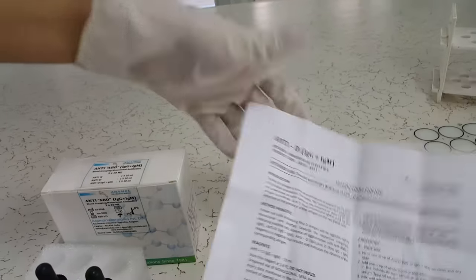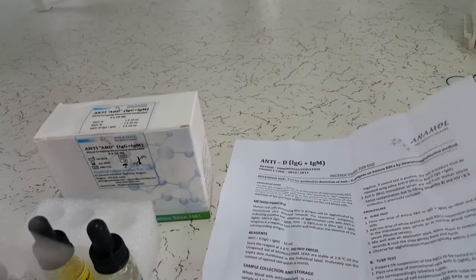The kit also contains a package insert. We recommend all the users to read the package insert thoroughly before using the kit.